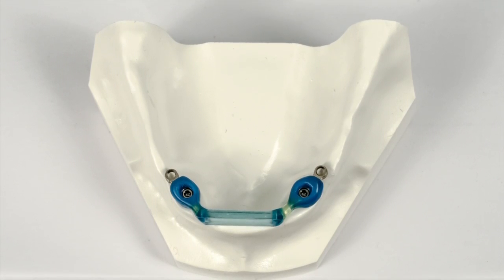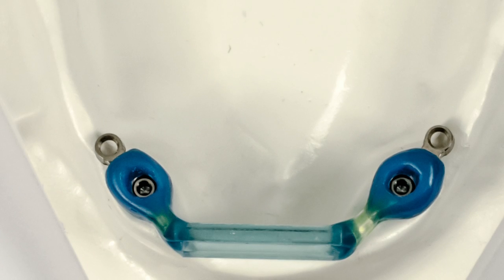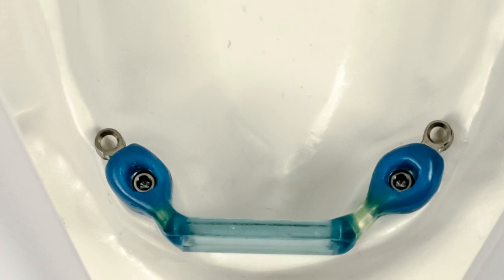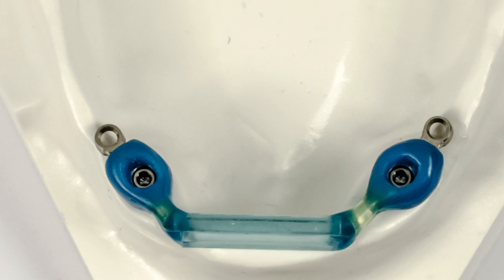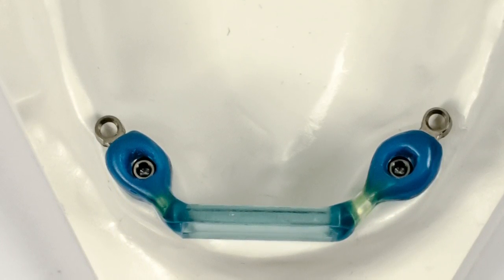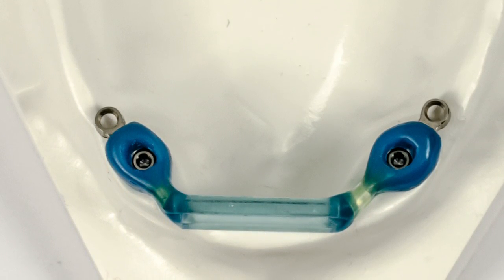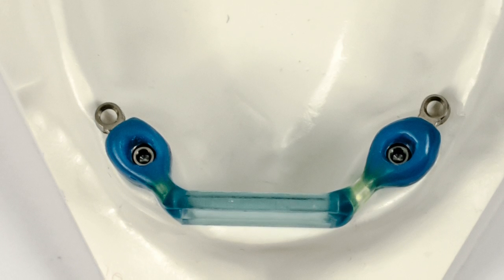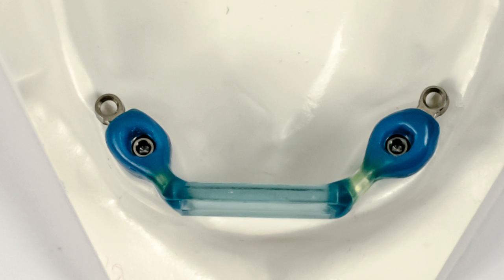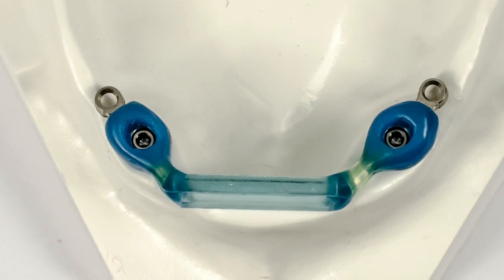You will notice that I added a micro stainless steel ERA off the distal of each abutment. This will provide support for the overdenture further back, therefore helping with mastication. The closer the support is to the second premolar, first molar area, the better. The resiliency of the ERAs will allow hinging in the posterior as the denture rotates around the bar.